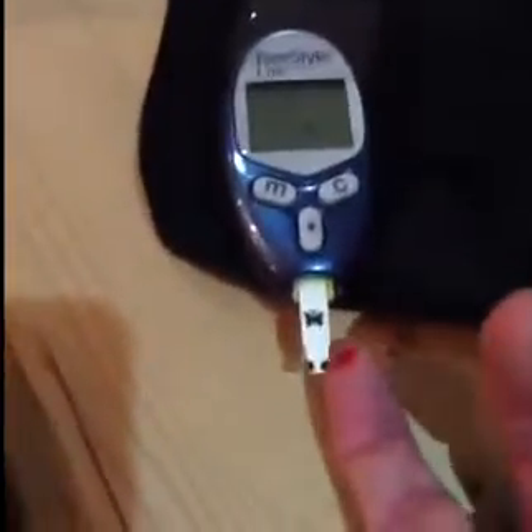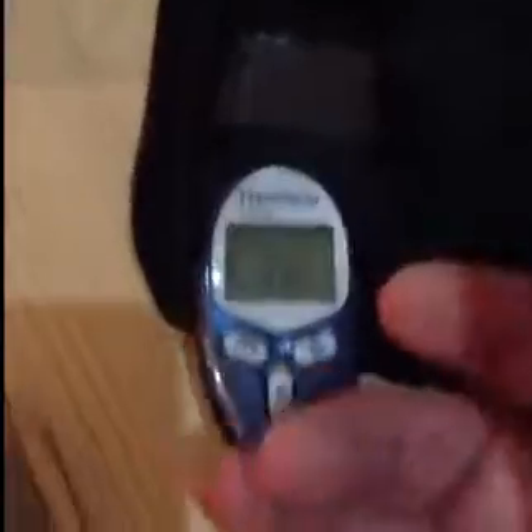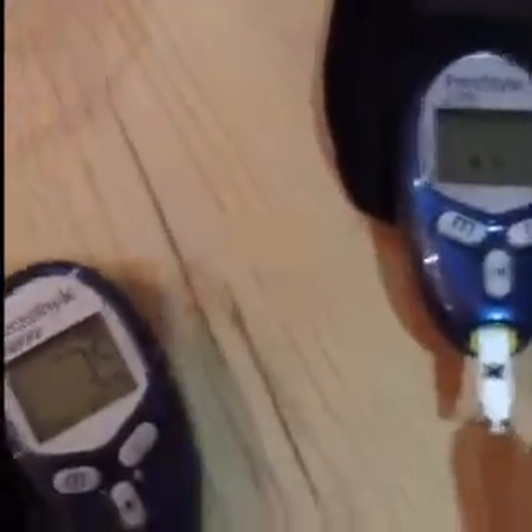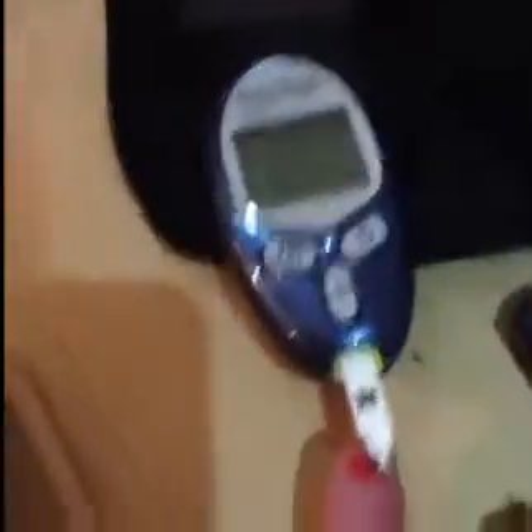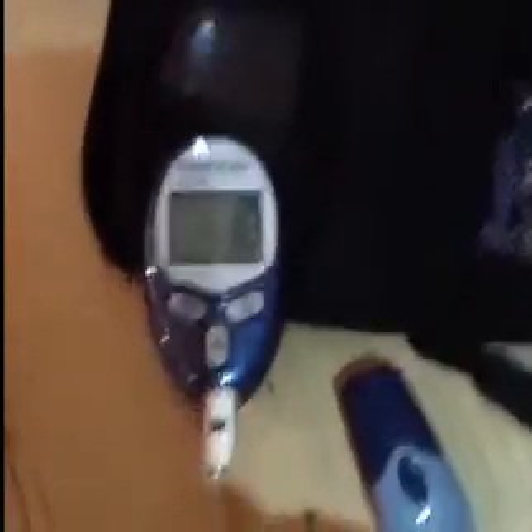I'm going to crack open the proper one now — straight out of the tube. This is clean, I've never used this one before. That's going into my normal everyday meter. This is one I actually used today. I'm running out of blood again. Let's see what this says — 1.8. That's very low. So these are nowhere near it. Quite interesting. So obviously I have a hypo.